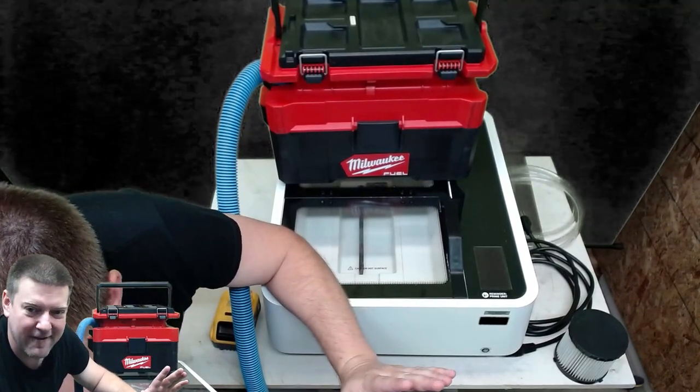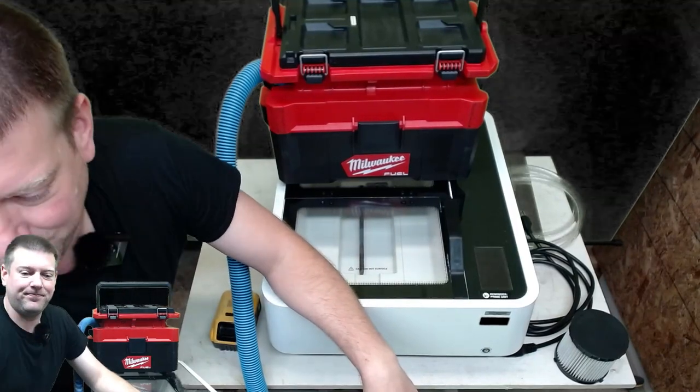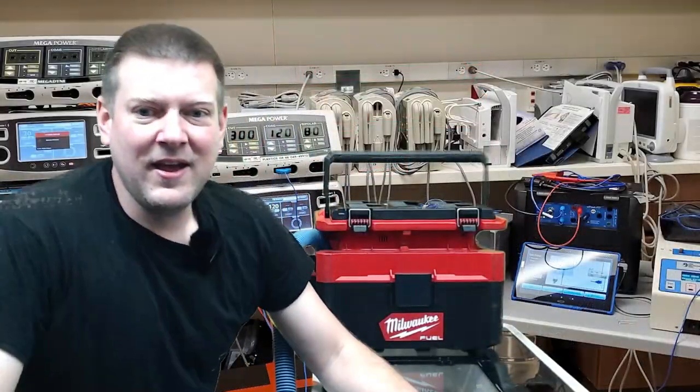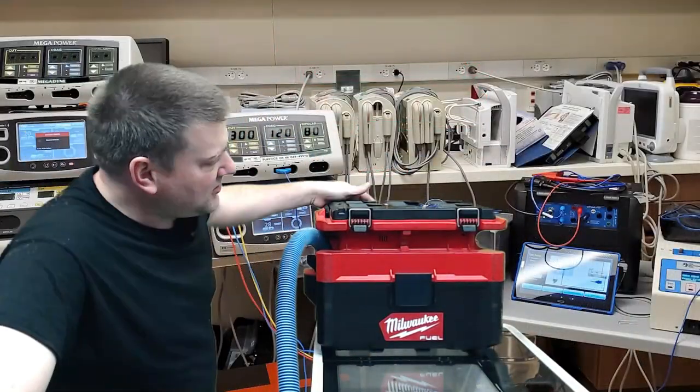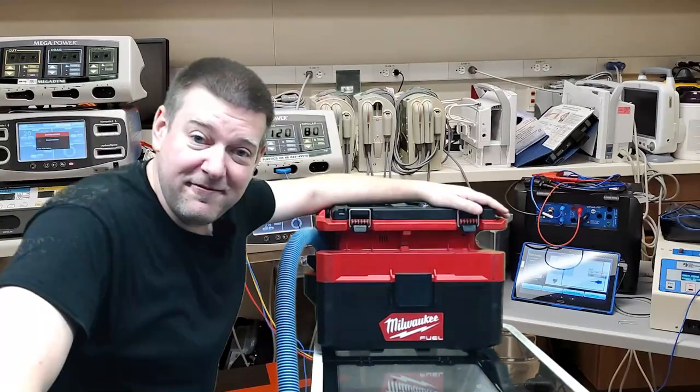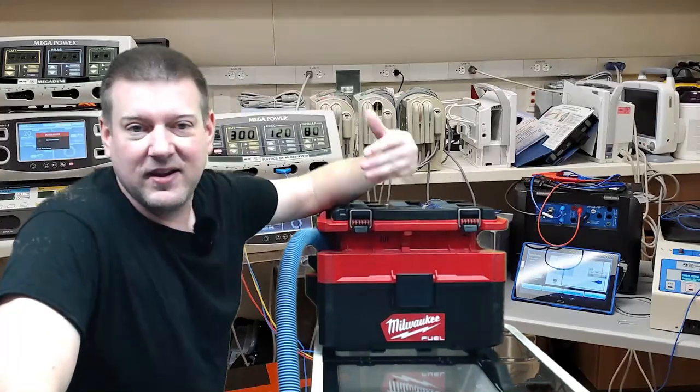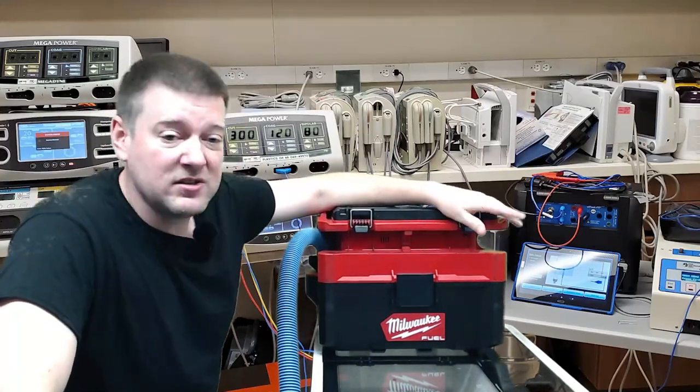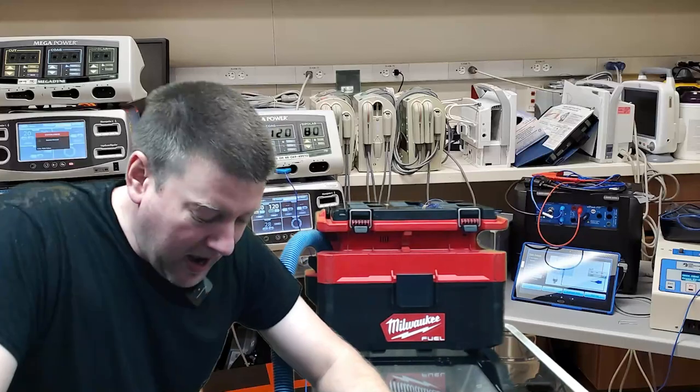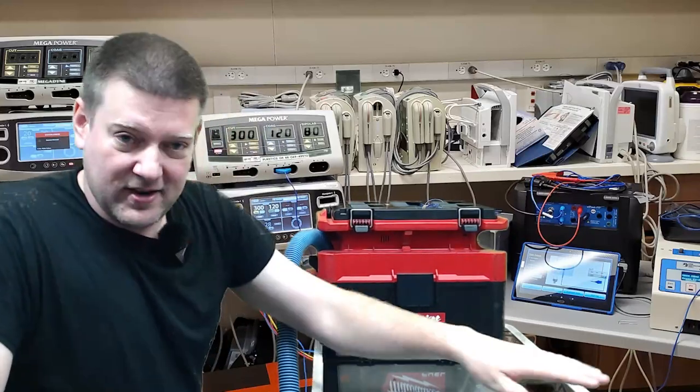I would say the battery-powered HEPA vacuum is one of the greatest things that you can have in your arsenal as a biomed. That's just a brief overview and a live demo because this guy was dirty and I did have to get all the liquids out. Now I can actually say that it's clean.